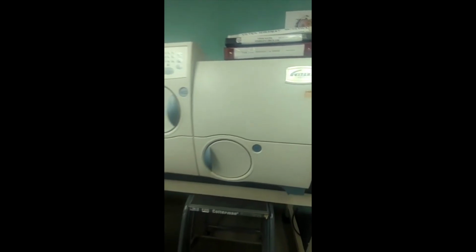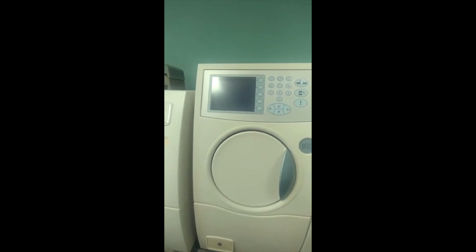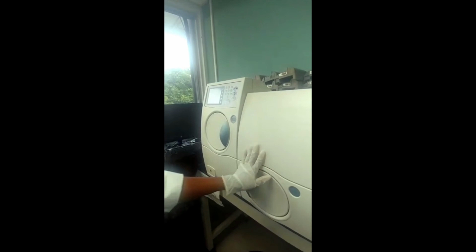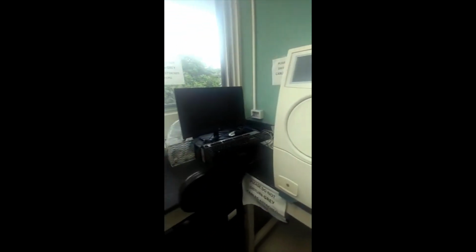Just want to show you quickly one more machine that we use to help automate the process of processing samples. This machine is used to identify organisms and do sensitivity testing. So this is the Vitek machine. It's not on right now. We're not using it right now. We'll talk more about it in the lab, but it can be used. We put the organism on cartridges. We don't have any examples now, but we put them in on these trays, and we put them into the machine, and the machine is able to run the various tests which will be in the cartridges, and susceptibility.